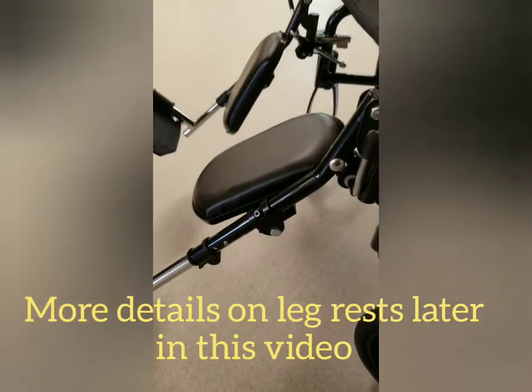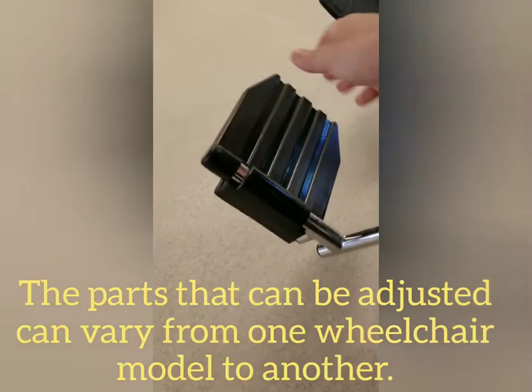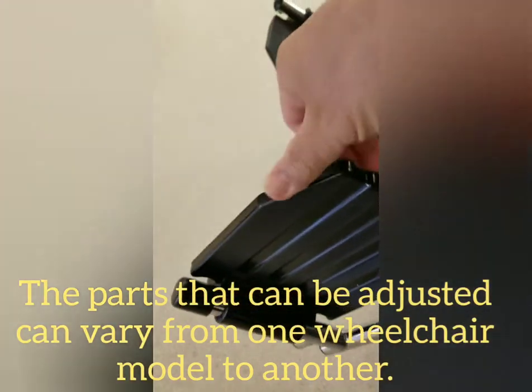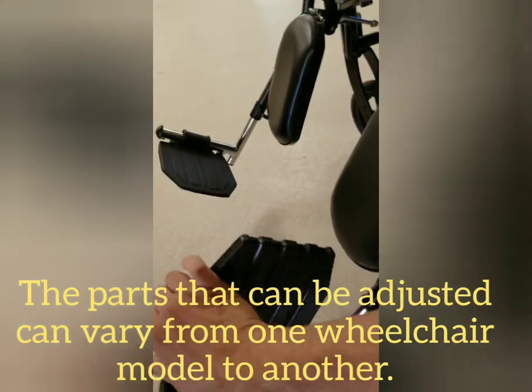Here are the leg rests. There are different types of leg rests. This is a calf pad — it supports the lower leg of the person so they're more comfortable. You can swing it away as you can see. You also have the foot plates, which can be flipped away if needed and help with somebody getting in and out of the chair.